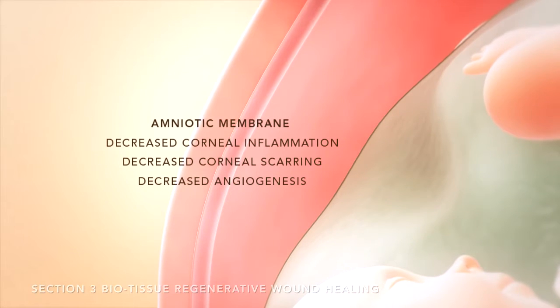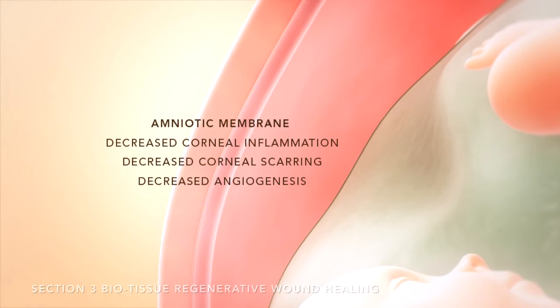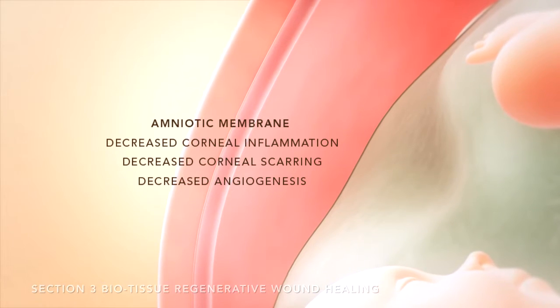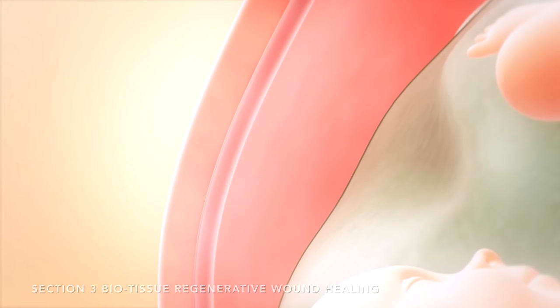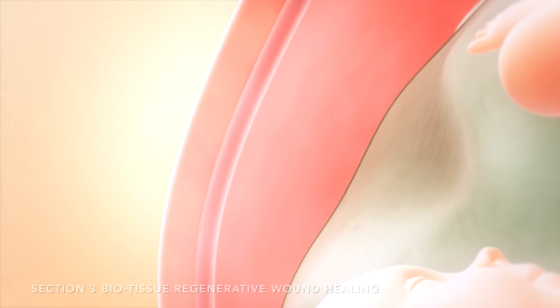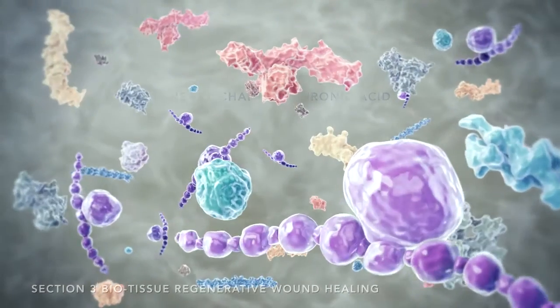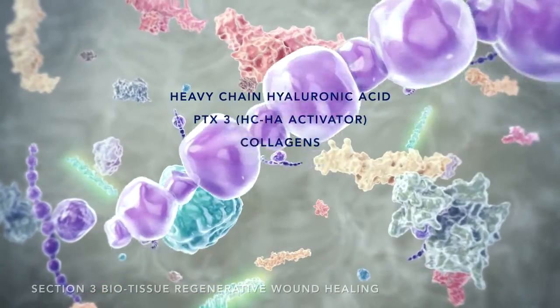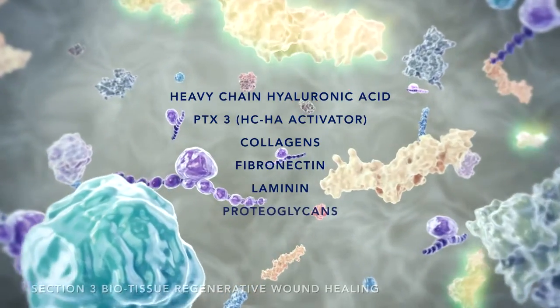Biotissue products leverage these key benefits to suppress ocular surface inflammation, scarring, and angiogenesis. Biotissue is the only company that cryopreserves its products using the Cryotech method, which ensures that the tissue is structurally intact and that the extracellular matrix components responsible for regenerative healing are preserved.